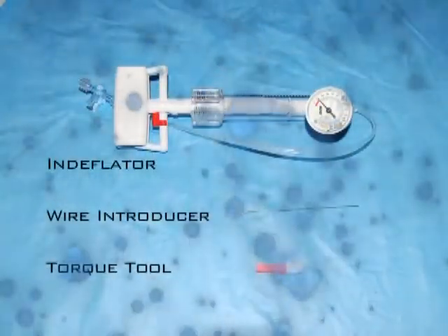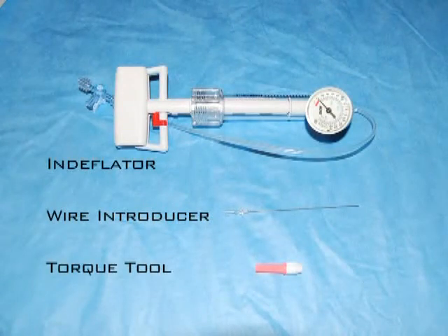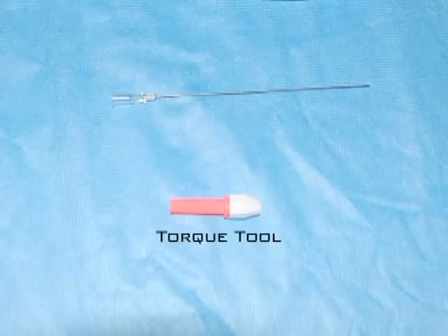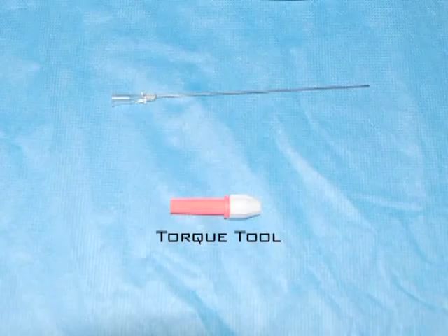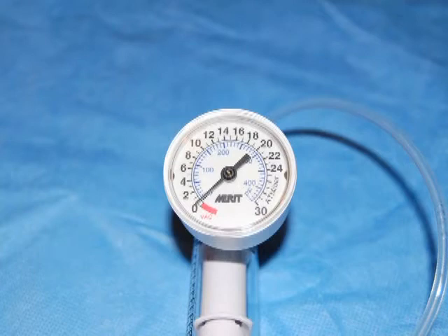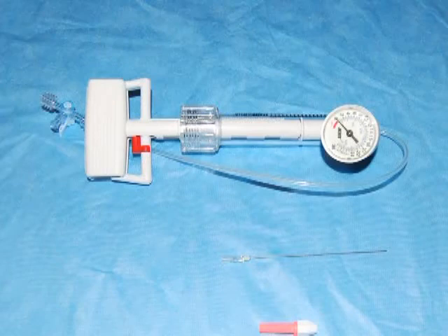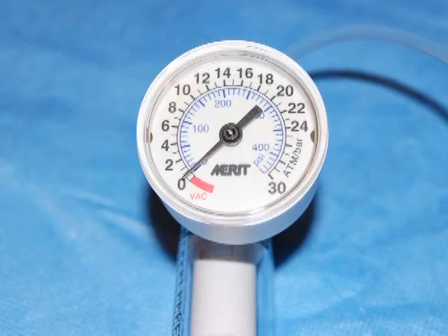An indiflator is coupled with an angioplasty guide wire introducer and an angioplasty torque tool. The torque tool is color coded and is a small pin vise which permits rotation of the angioplasty guide wire. The angioplasty balloon is inflated with an indiflator device which provides atmospheres of pressure to inflate the small balloon. It is filled with a mixture of contrast material and saline and can deliver pressures ranging from 1 to 2 atmospheres all the way up to 20 to 22 atmospheres.